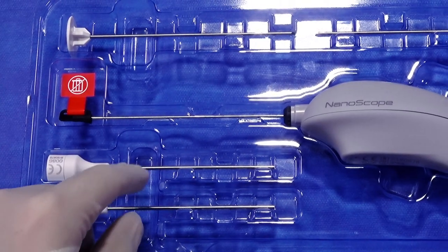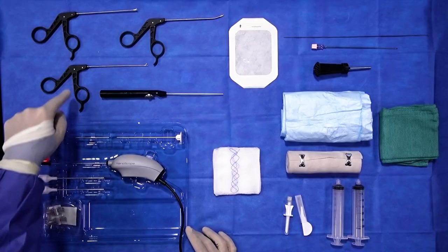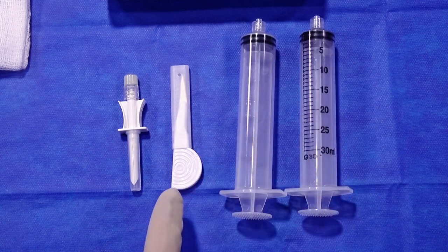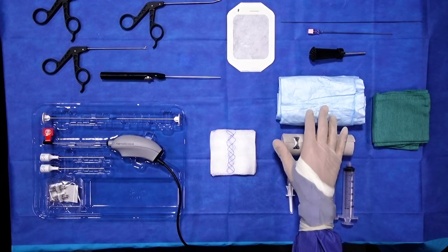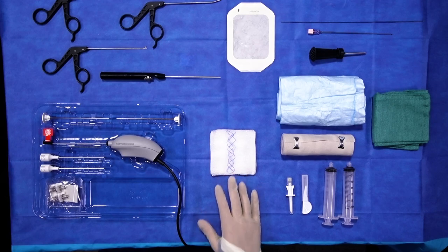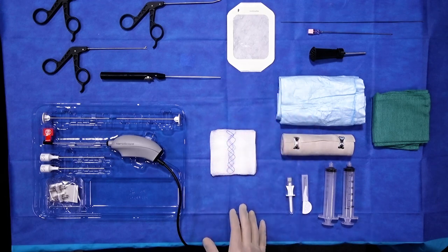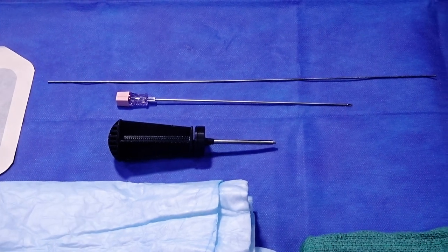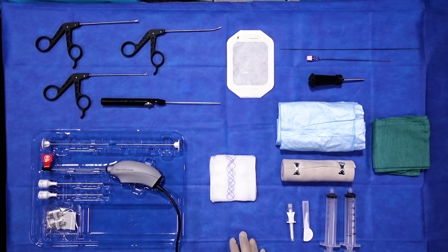The 2.0 to 2.2 millimeter outer diameter instruments include probes, biters, and graspers. The prep kit contains two syringes, a disposable 11 blade for access into the joint, an ace wrap, sterile drape and sterile towel, and gauze. The access kit includes a spinal needle, guide wire, disposable obturator and cannula, and a custom adhesive Tegaderm that secures the cannula to the knee joint to avoid loss of access during the case.